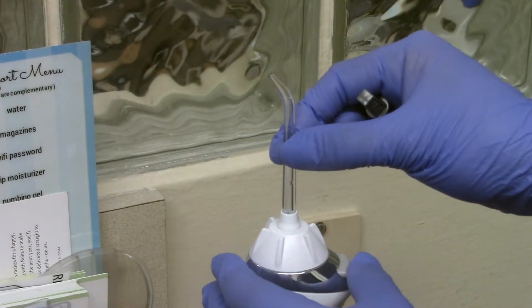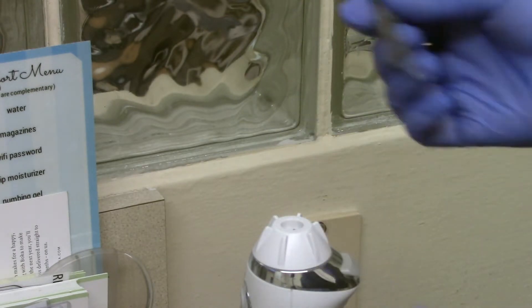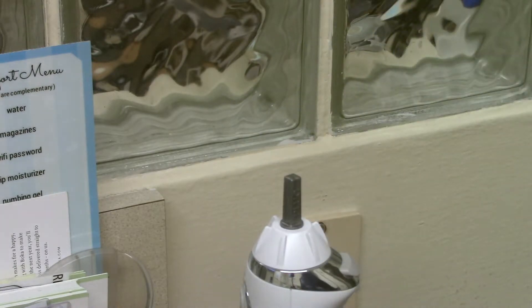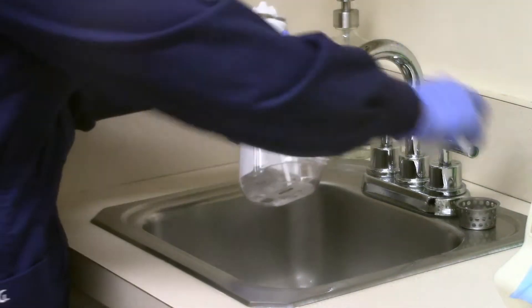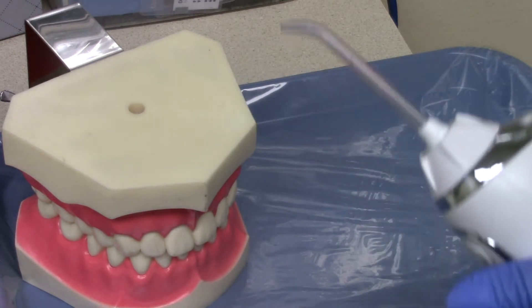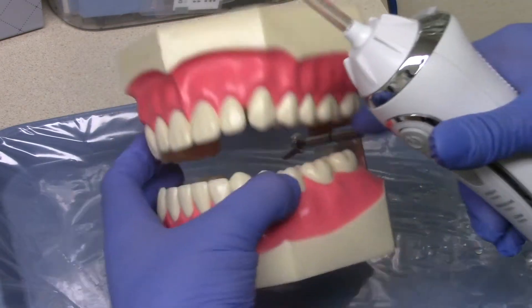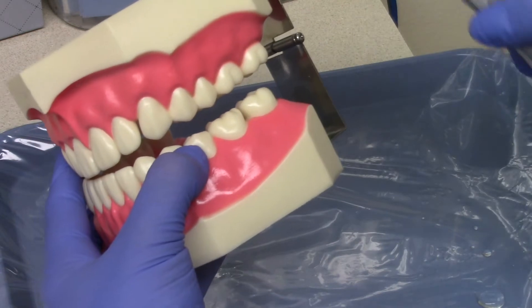So how to fill it up — it's easiest to just open the port at the sink and pour water in. I'm going to show you on this tooth model how to properly use the water flosser up against the gums. Like I said, it's great to use it in the shower or hovering over the sink because it does splash in a lot of different areas. I have it on low here so it doesn't splash everywhere.